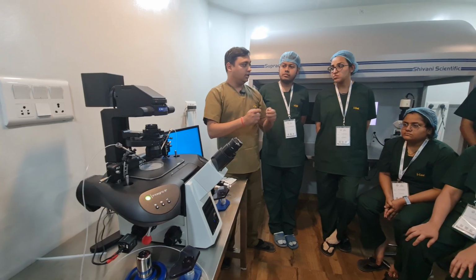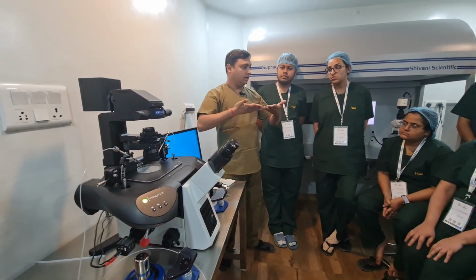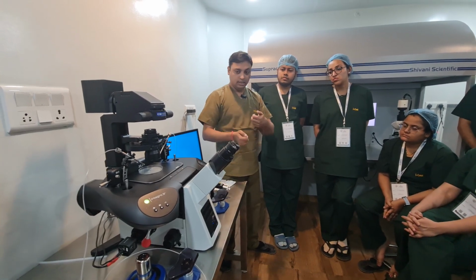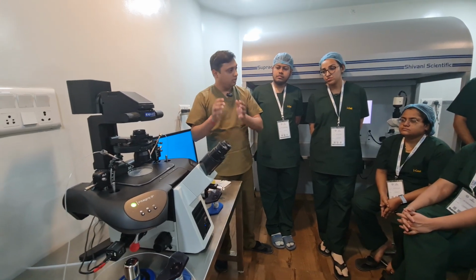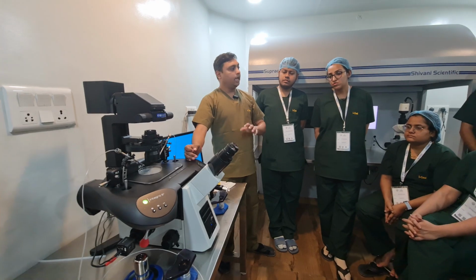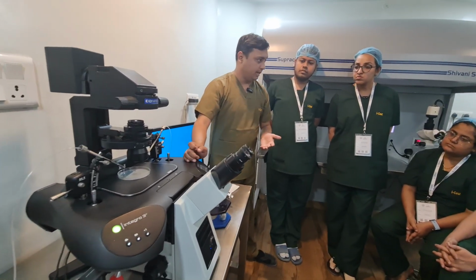Some asked that the needle setup should be in air. Some wanted a timer. Some wanted image clicking. So we received a number of feedbacks, and whatever we could do, we put into the machine. When this machine was made, it was almost 4 years of testing, and then it came into the market.